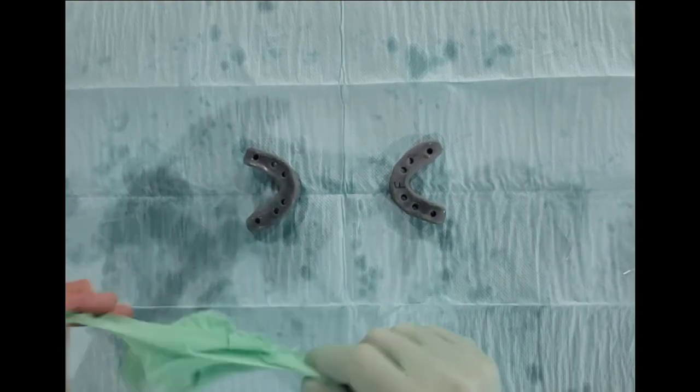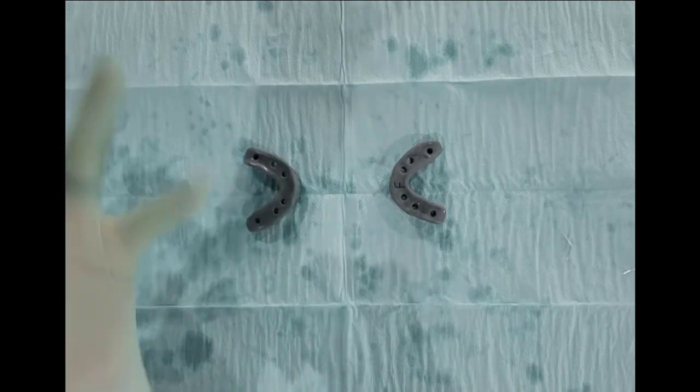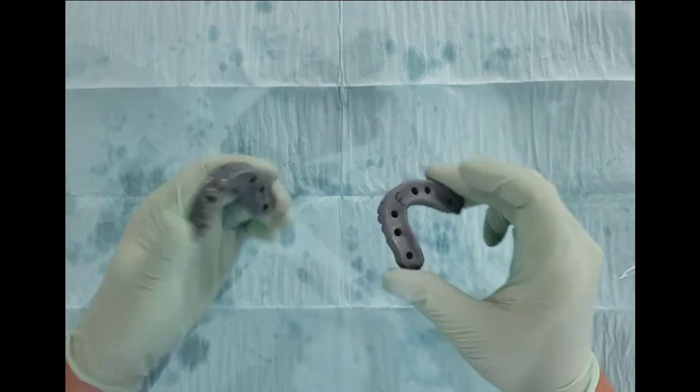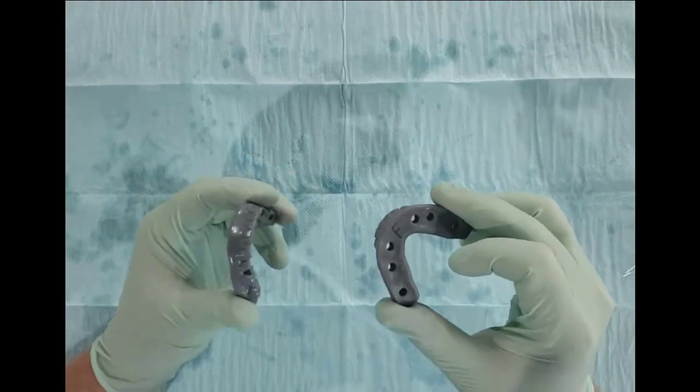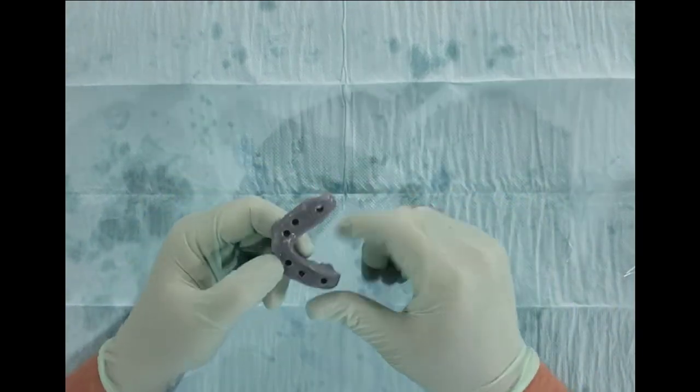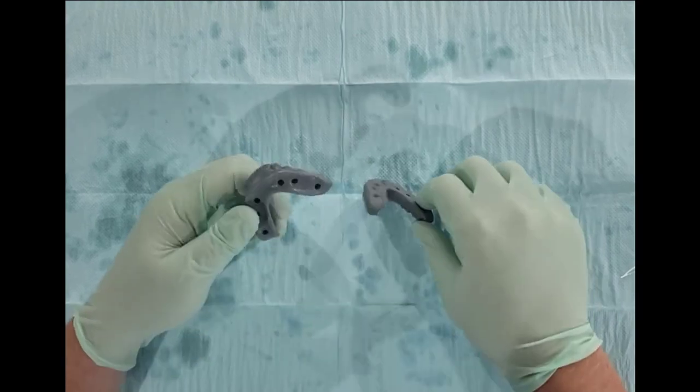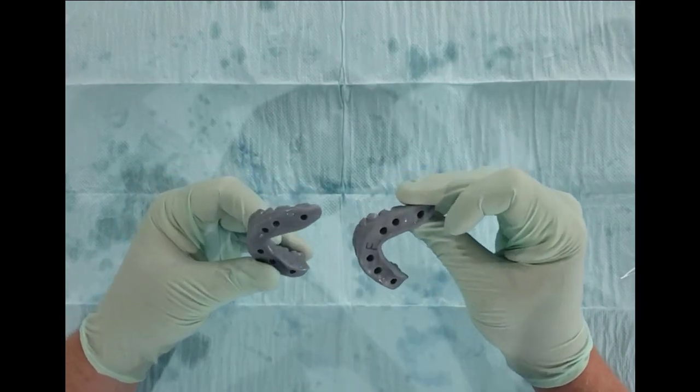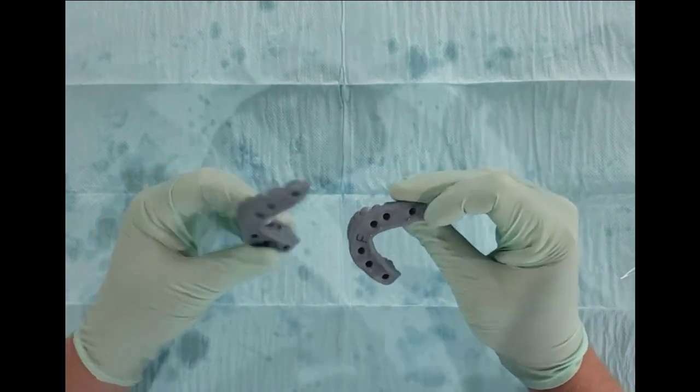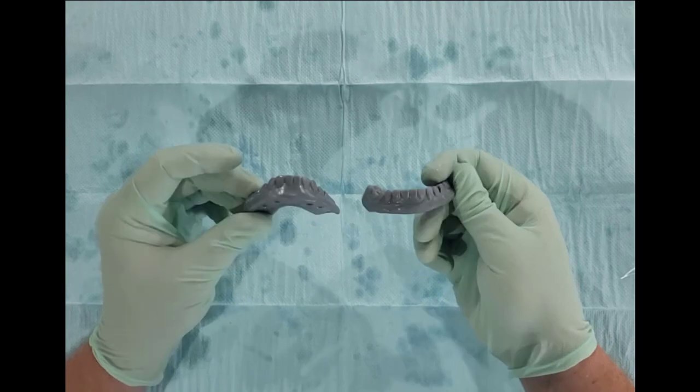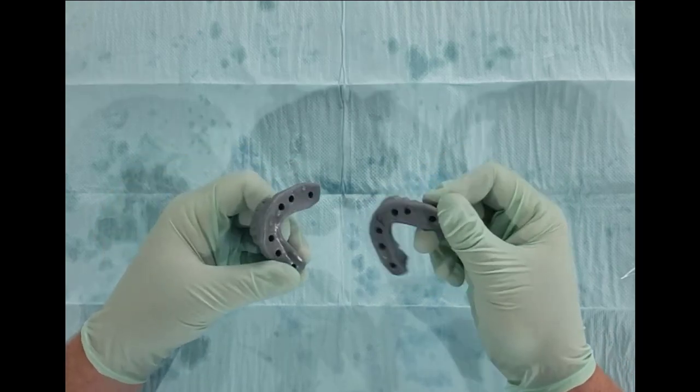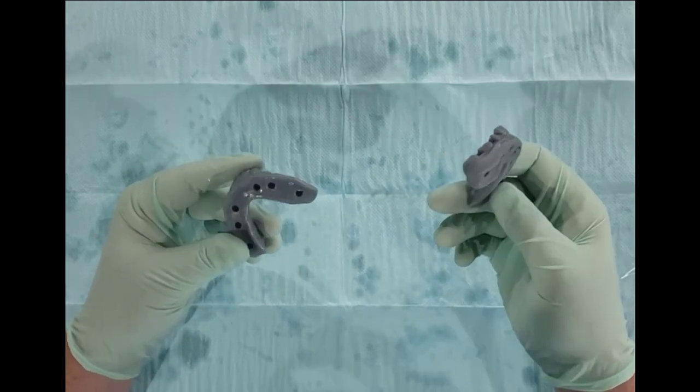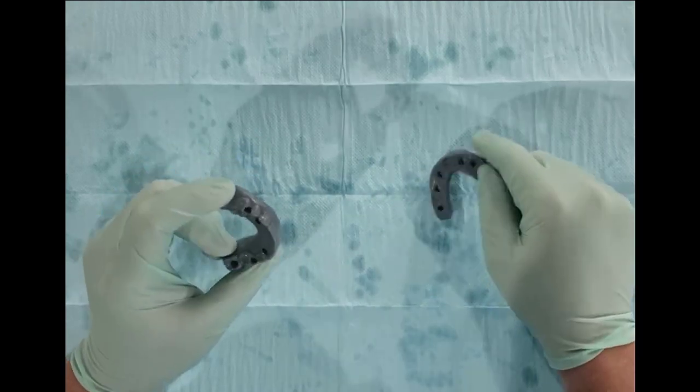We put in the fiberglass, that takes maybe five or ten minutes to do. Let's now test and see how strong these two are. I've written an F on this one, this is the one with fiberglass, this is the one without. The exact same file, exact same dimensions, same polish. There's no extra material on one that there's not on the other.